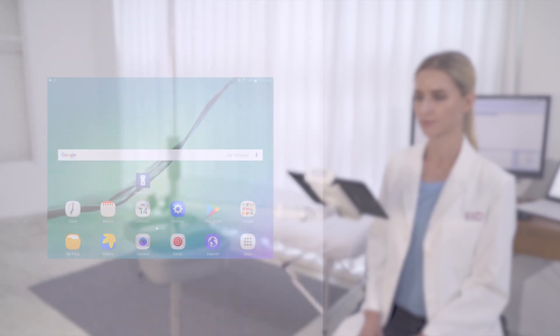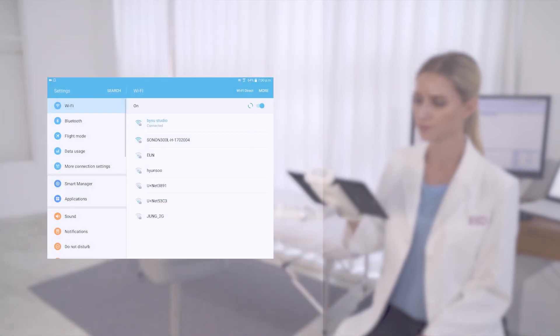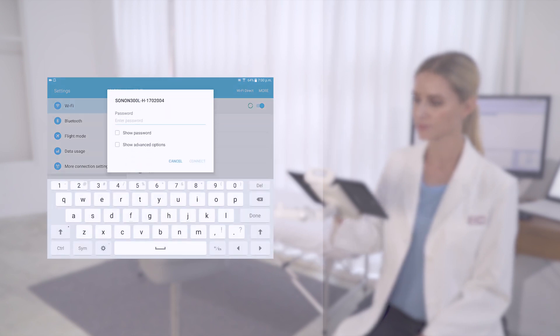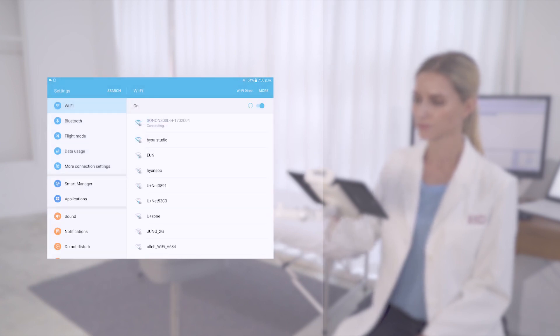The LED indicator on the top of the product is now blinking and is now ready for use. First, go to the Wi-Fi settings on your mobile device and select the SSID. The SSID is named by the model name and serial number. The default password is 1234567890 and can be changed later in the settings menu.